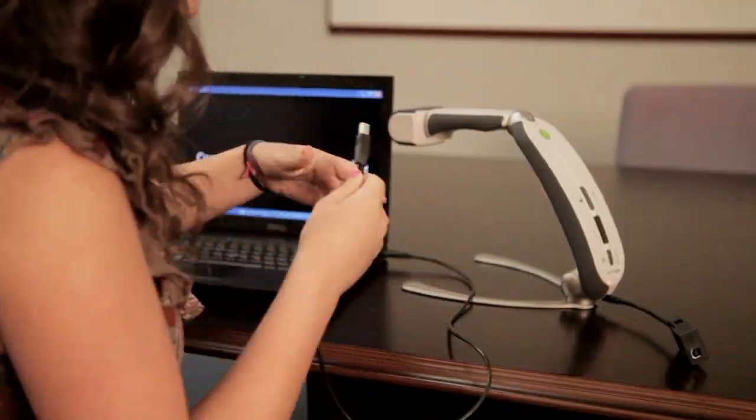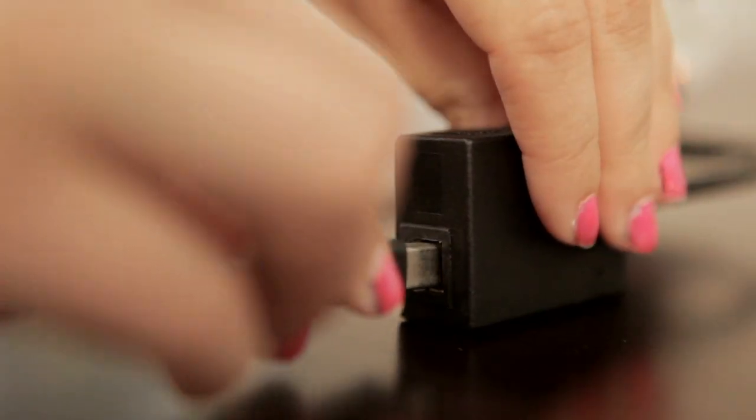It literally shows up on my laptop. I can freeze the frame before the teacher erases the board, and I can save it onto my laptop. All I have to do is plug it into my laptop. I just set it up right in front of my laptop, so it's super subtle. It's not a big deal that I'm using it in the classroom. It didn't take me long at all to figure it out.